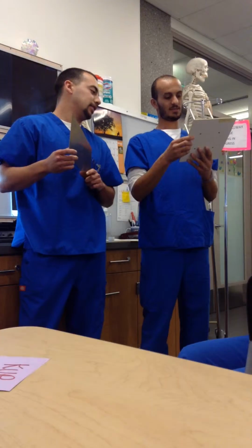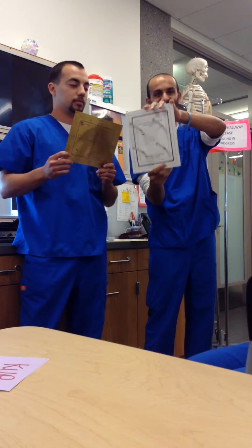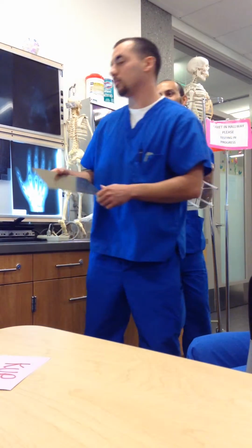You can tell. No, I don't think it's there. About what? Called a Wisconsin collimator test tool. What's it called, David? Collimator test tool. See the dot? Oh, that's the one I was looking for. So you got 3 samples back there. Okay, and what's the requirement?